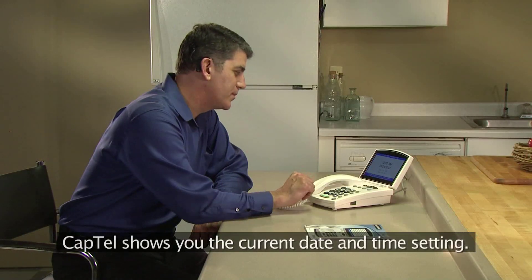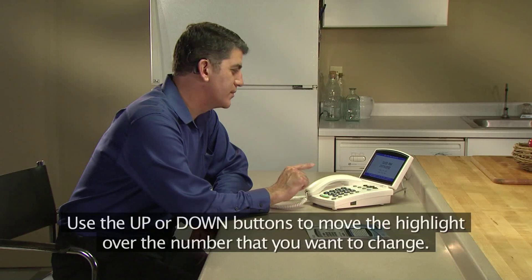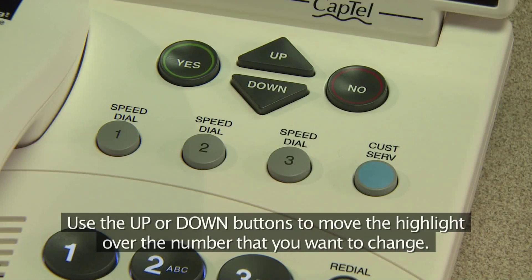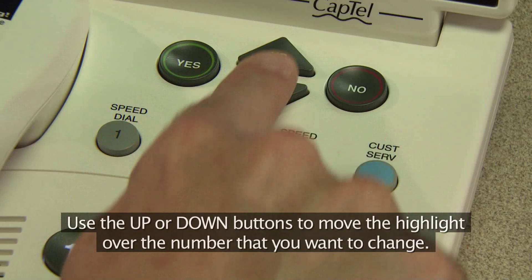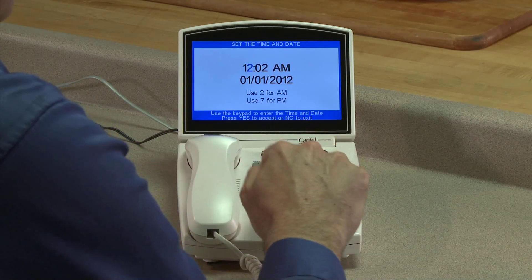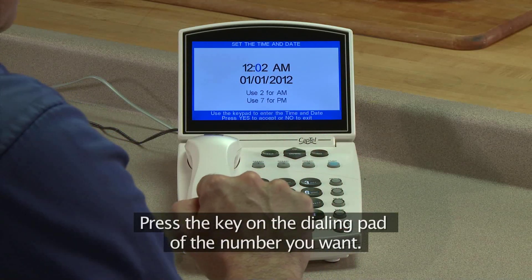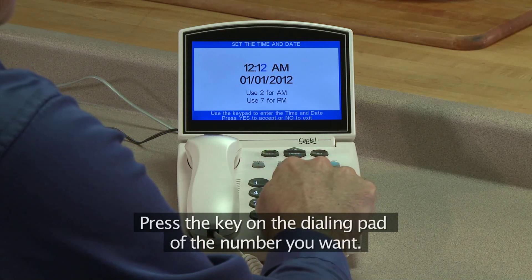CapTel shows you the current date and time setting. Use the up or down buttons to move the highlight over the number that you want to change. Press the key on the dialing pad of the number you want.